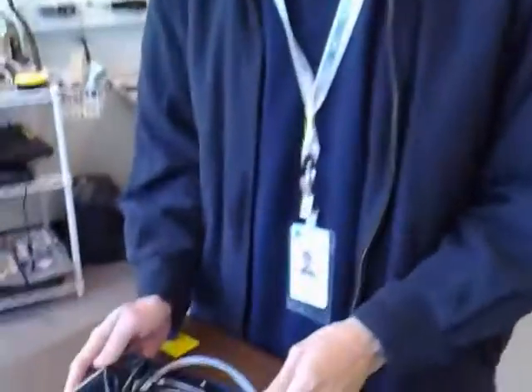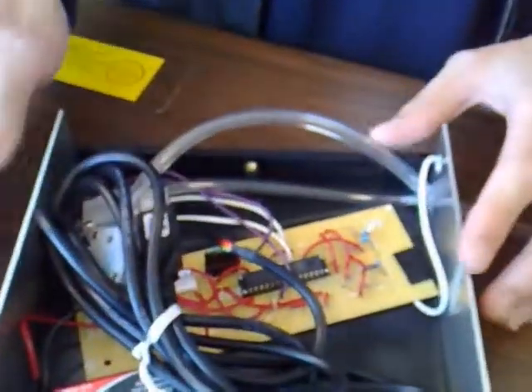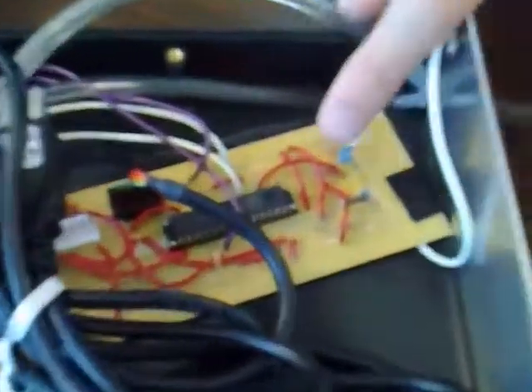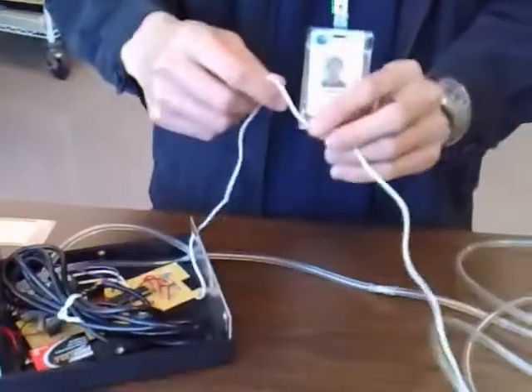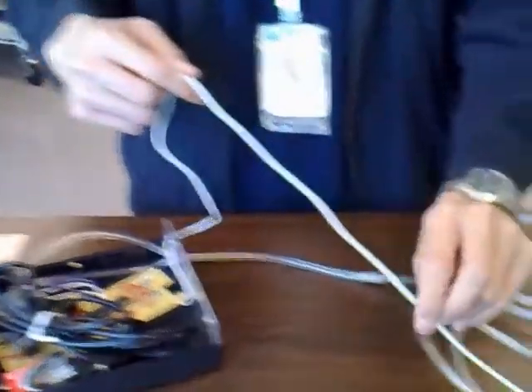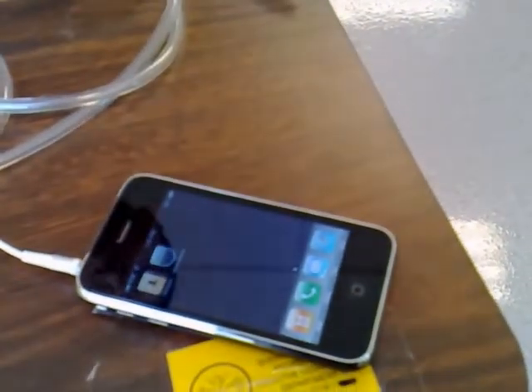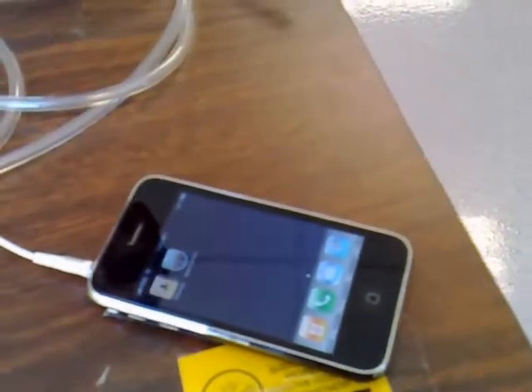What we have here is a box containing our system. It features a board with a Cypress chip, a 9-volt battery, and two sip-and-puff sensors. Out of those sensors comes tubing which goes to a sip-and-puff straw. The idea is that you can sip and puff into the straw and send the data through this cable, which is the audio and microphone cable, into the iPhone to control our custom application.